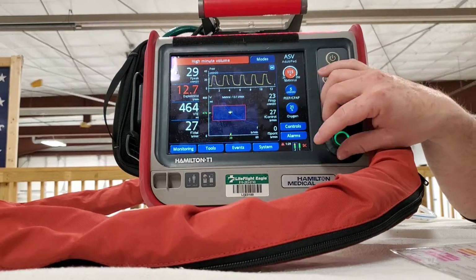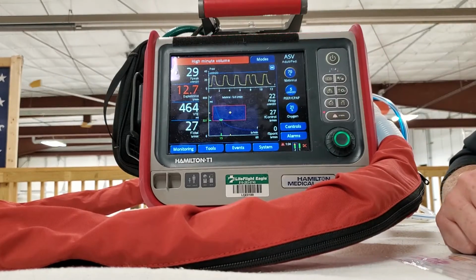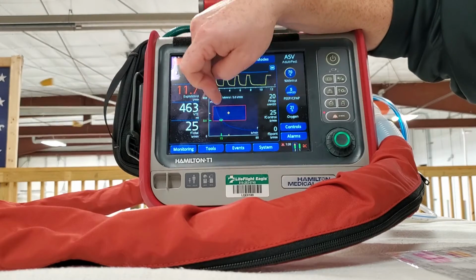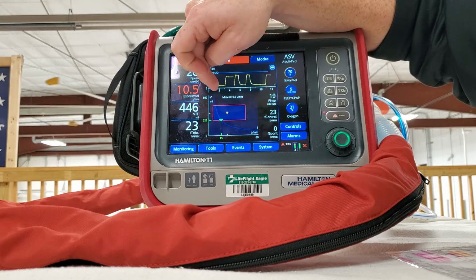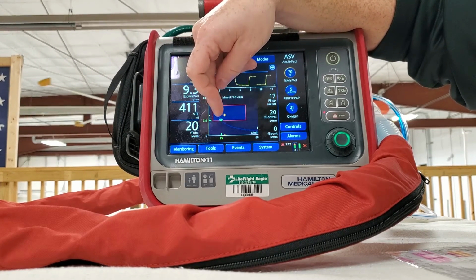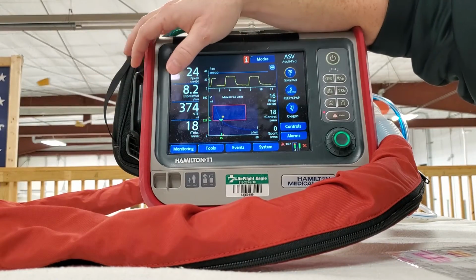So if I did the opposite, I went down to 80, 70, let's go 70%, just see what happens. Well, now the vent's done its calculations, decided that this is what's best, and so it's going to adjust. The reason I show you this is that you can manipulate this box, and as you use it more, you'll understand how to make changes to get this.